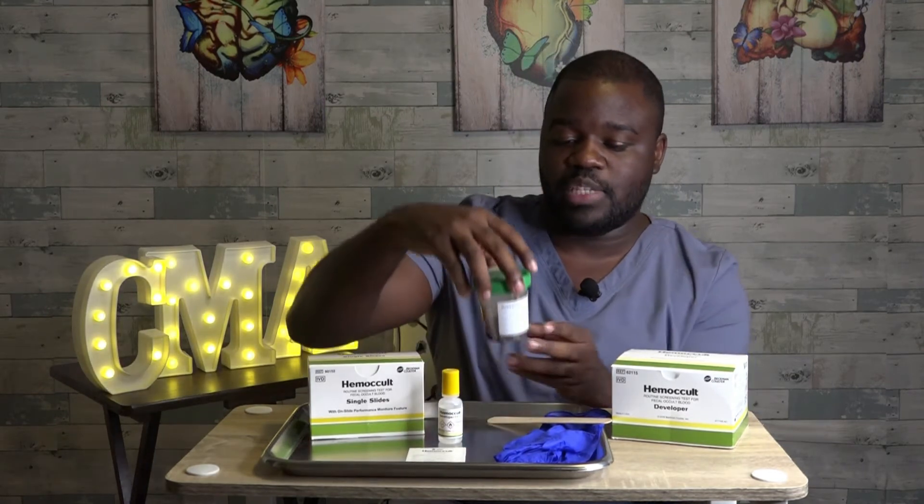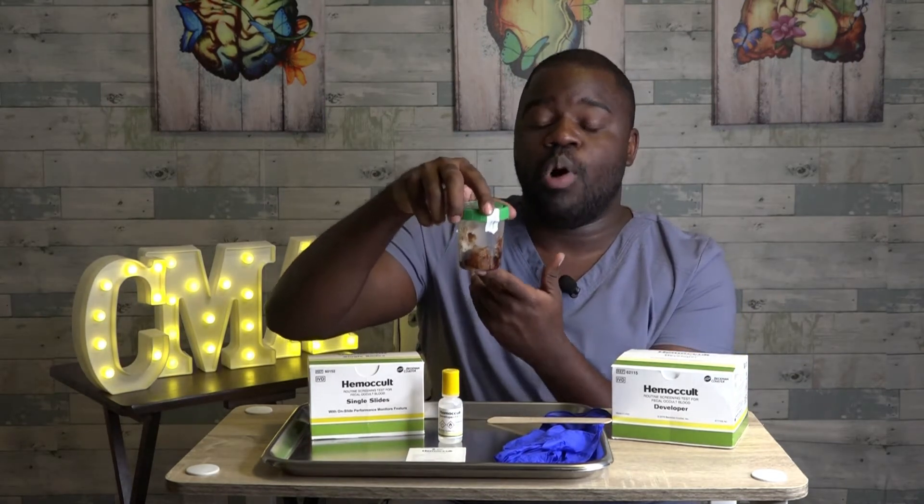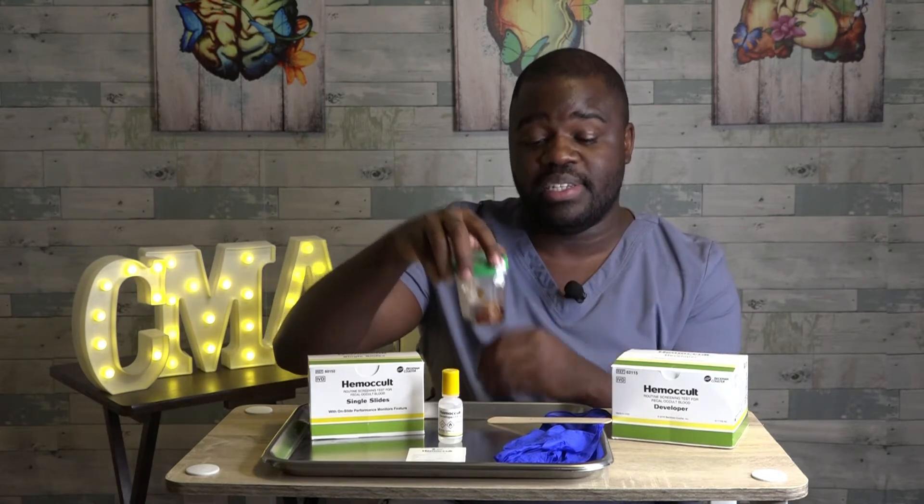When we begin to look at hemoccult testing, the word hemoccult means hidden, or to hide. It's literally translated as blood that's hidden in the stool. And so when we look at a specimen like what's in this container, we won't always be able to see actual blood in the feces, which is why this test is so essential.